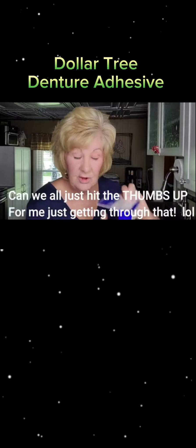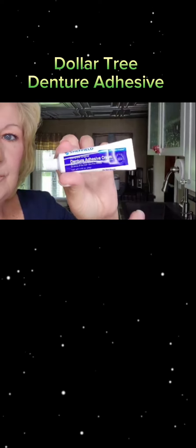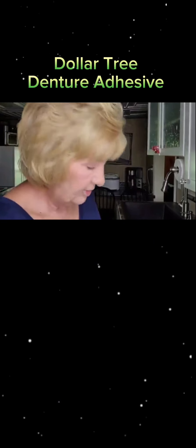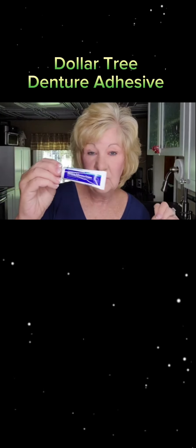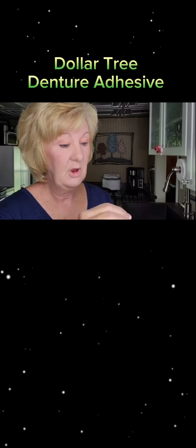If you're allergic to red dyes, a lot of denture adhesives have Red Lake 27 in them. This little tube is only 0.85 ounces and I think Dollar Tree went up to a dollar twenty-five now, everything is a dollar twenty-five.